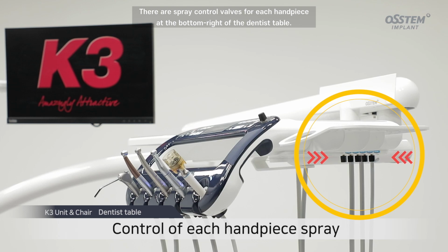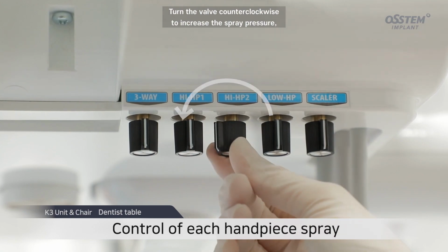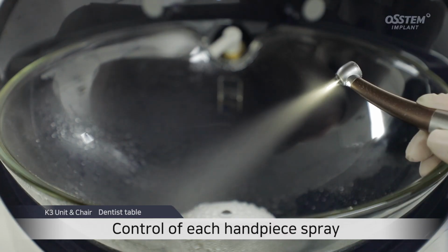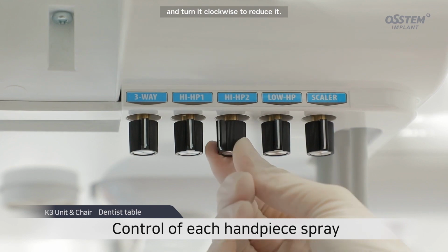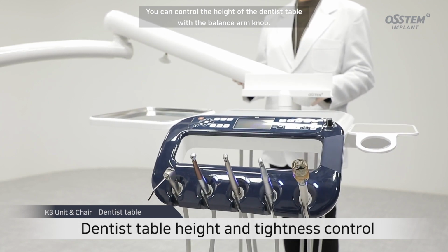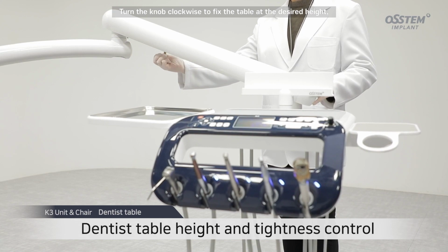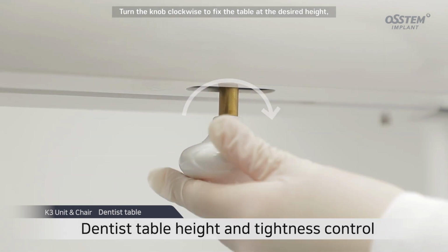There are spray control valves for each handpiece at the bottom right of the dentist table. Turn the valve counterclockwise to increase the spray pressure, and turn it clockwise to reduce it. You can control the height of the dentist table with the balance arm knob. Turn the knob clockwise to fix the table at the desired height.